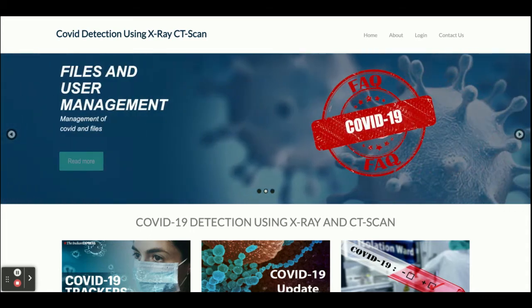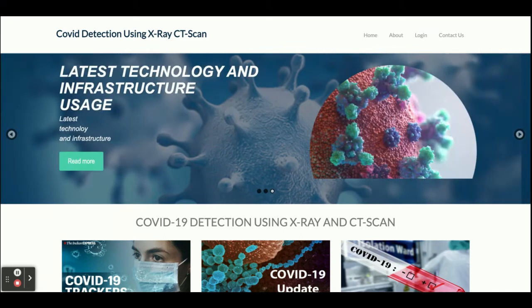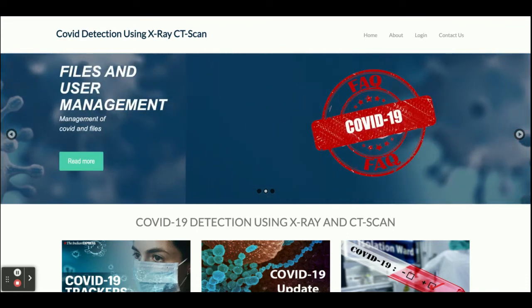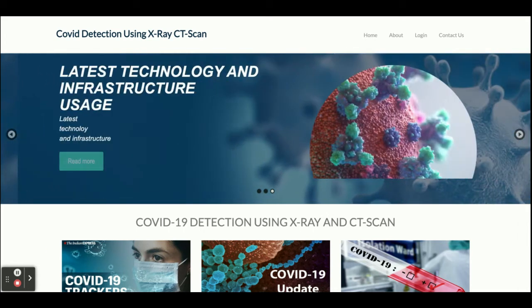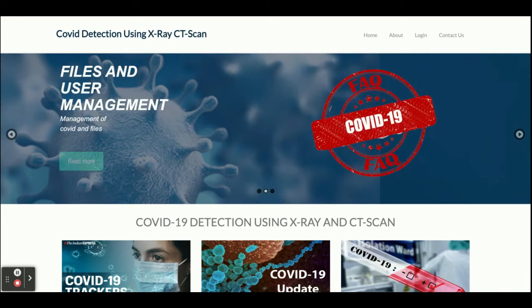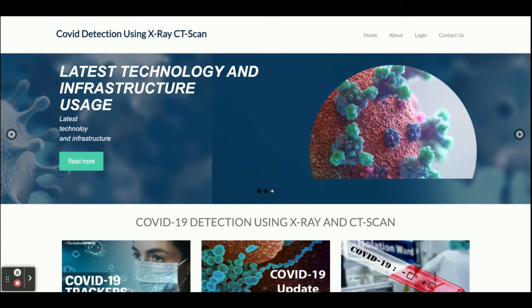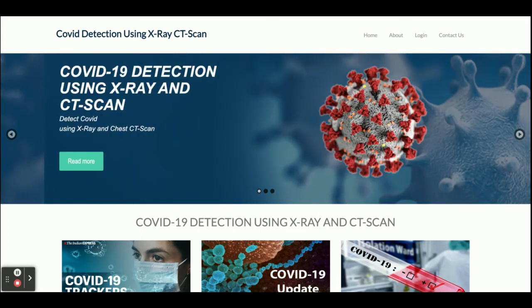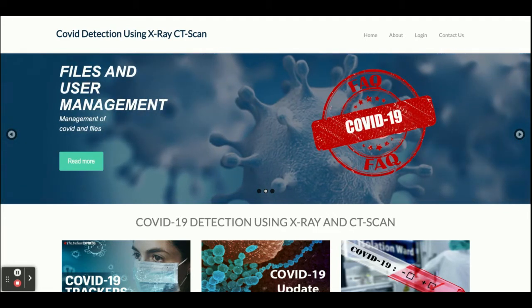Using those image datasets — we have more than a thousand images for COVID patients as well as non-COVID patients, and we have a thousand CT scan images for COVID patients as well as non-COVID patients — we have trained our models on those images and created the model files. If you upload your chest X-ray or CT scan into this project, it will detect whether you are infected with COVID or not.